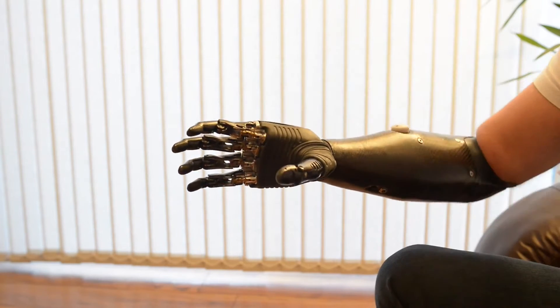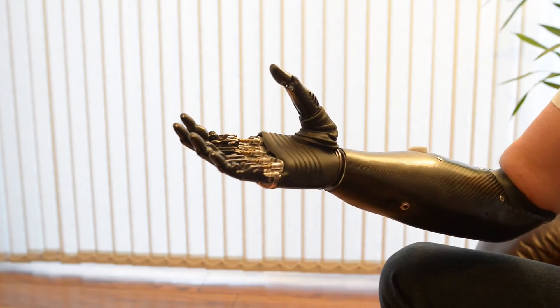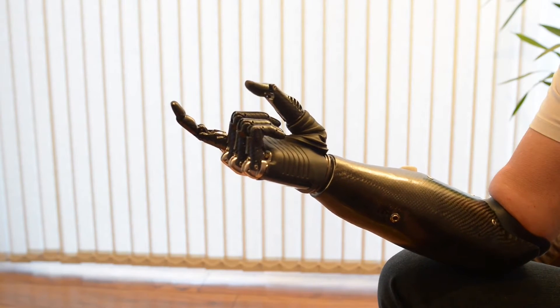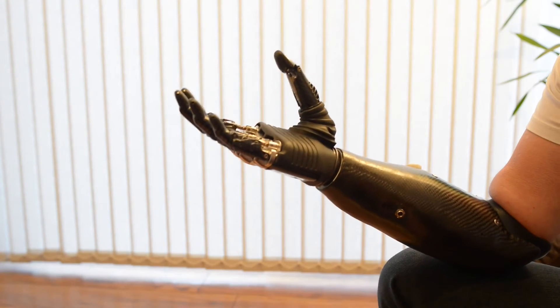Then we have this grip here — this is one that scares children and upsets my wife. I'll take the hand here. This is trigger grip, but it can be adapted if you so wish — if you've got the guts.